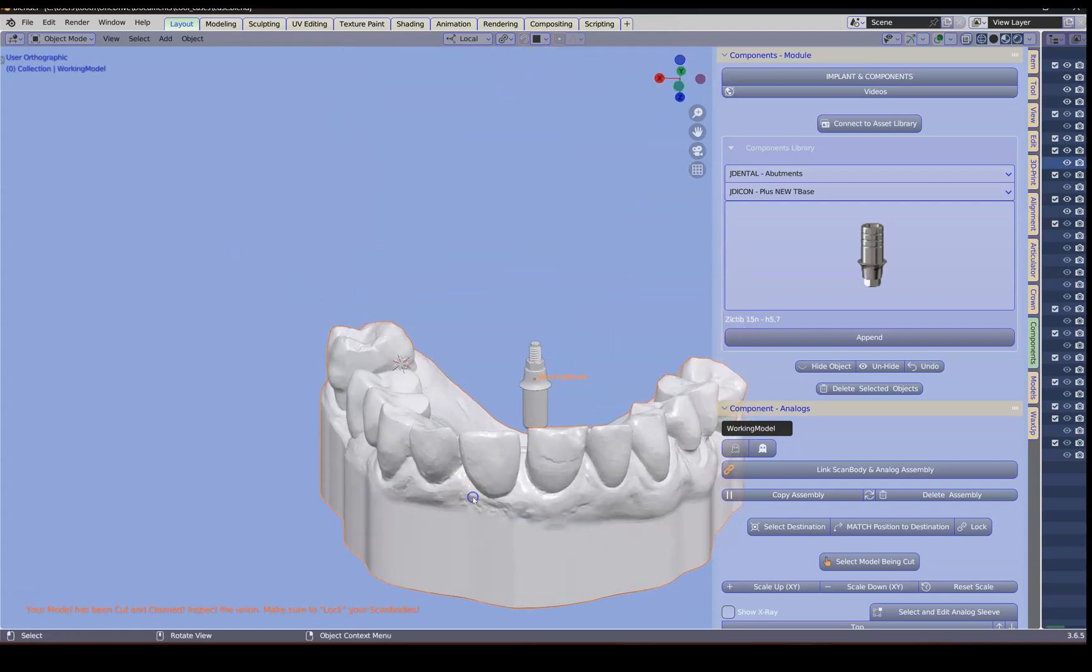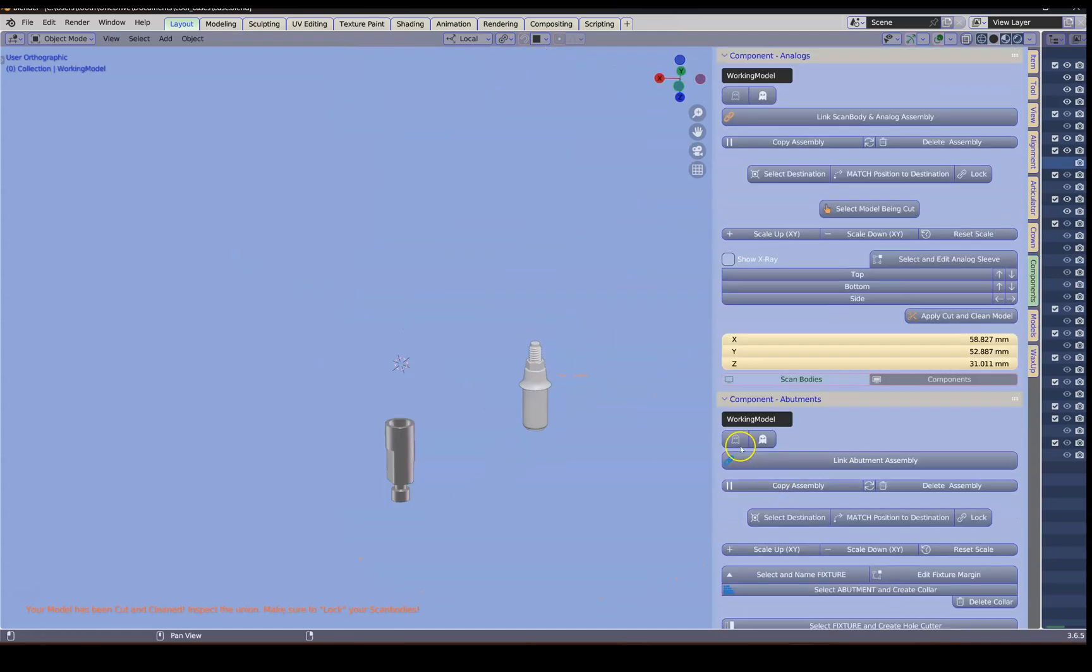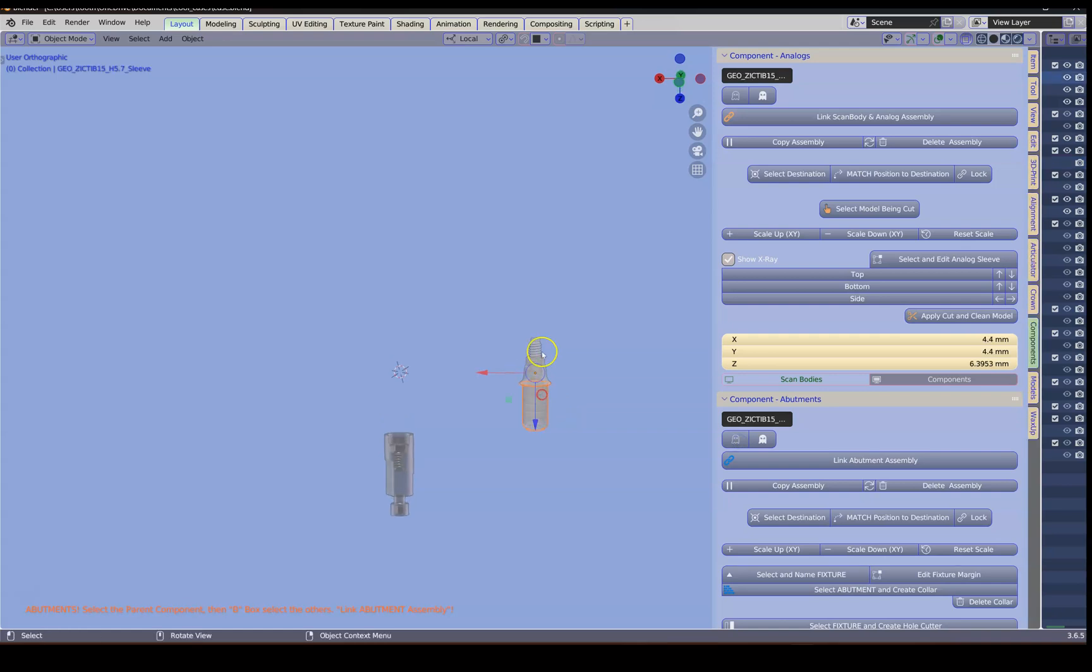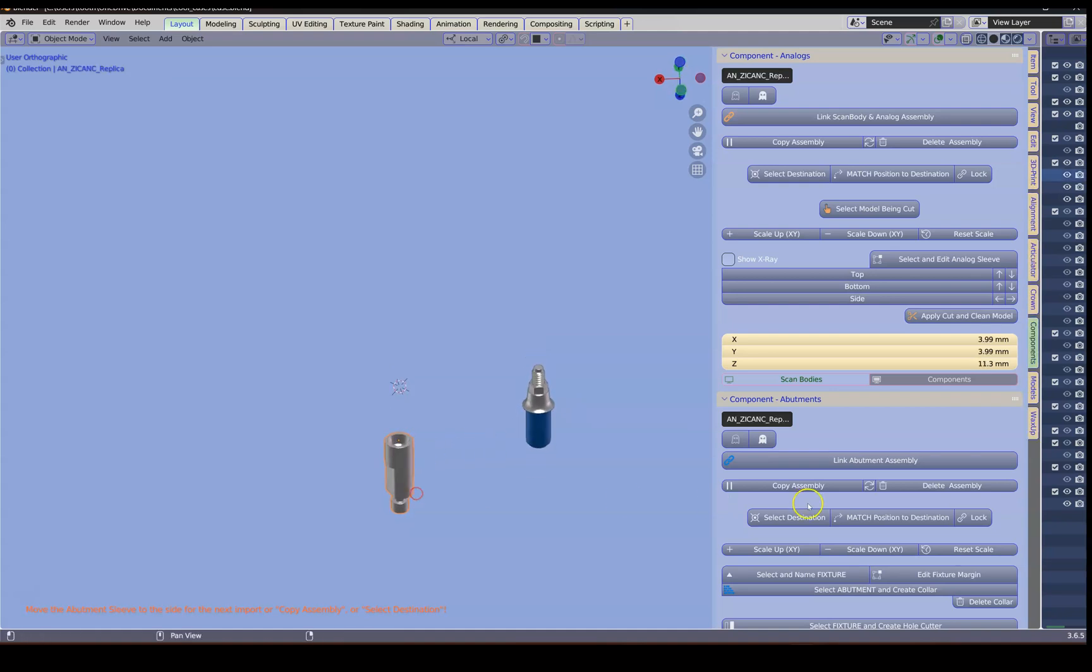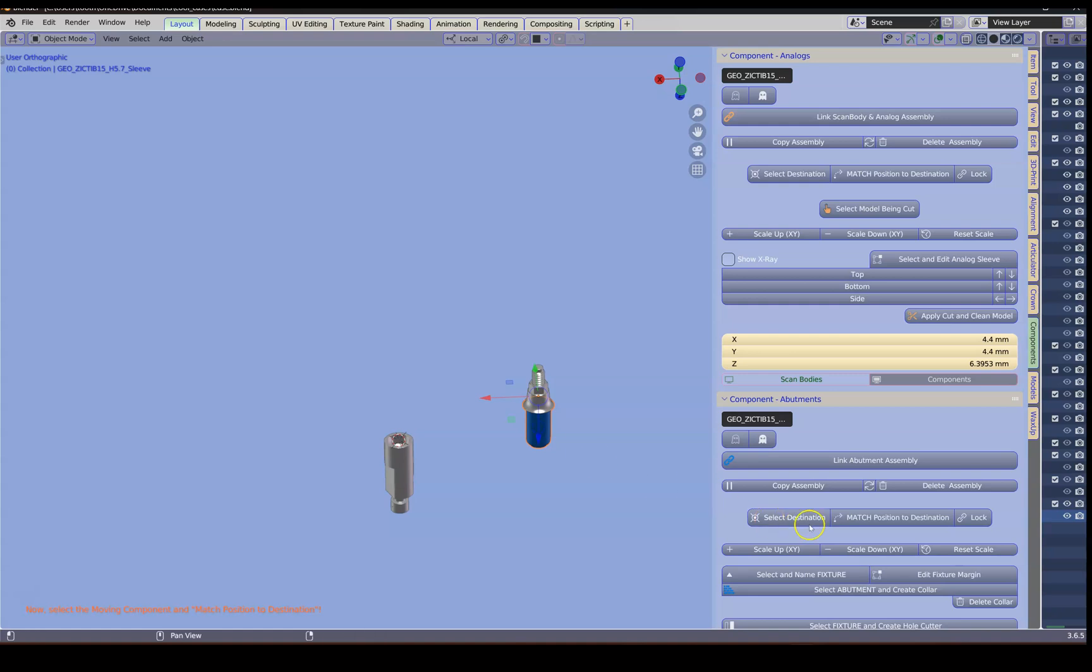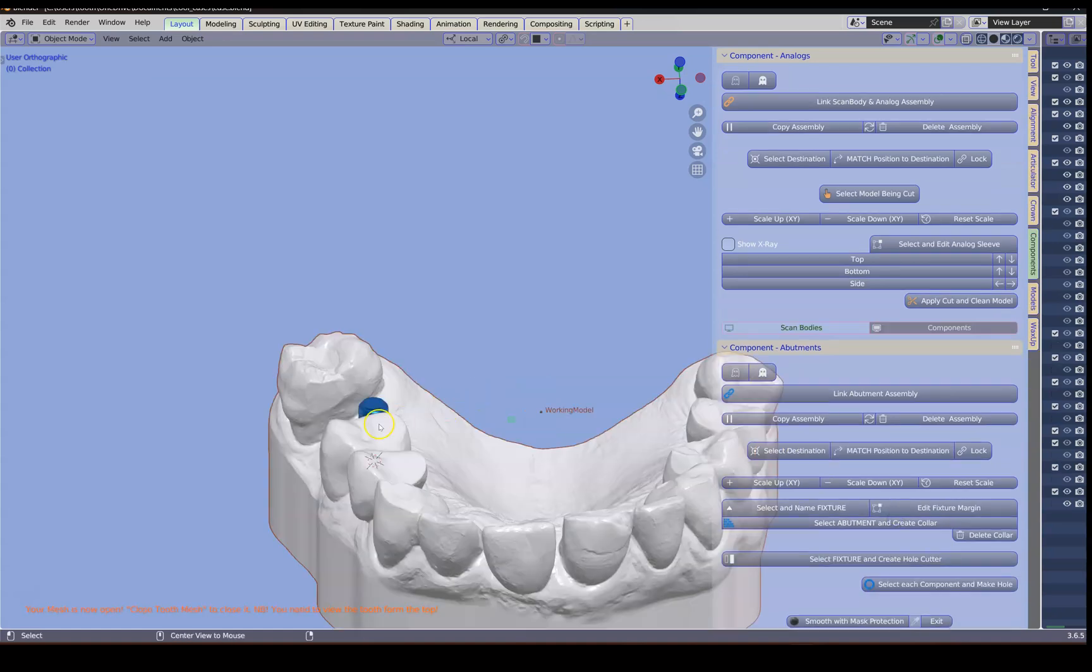I'm going to pick one of those. Again I'm just going to hide this one. Going to transparent mode. Selected. B. Box selected. And bring in this component. This is my select destination. And move match to the destination.